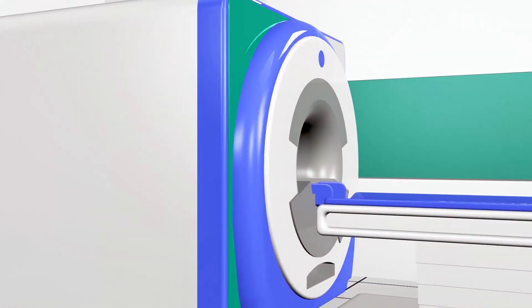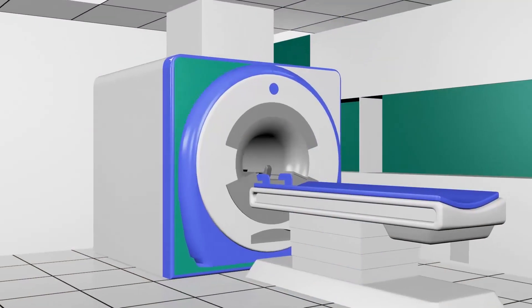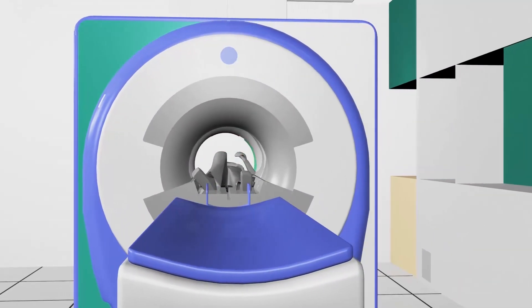The MRI scanner consists of a 24-inch tube inside which the examination takes place. It is made up of four components.